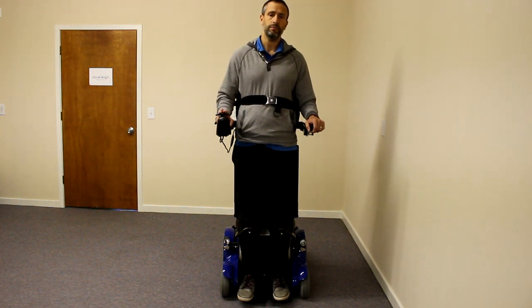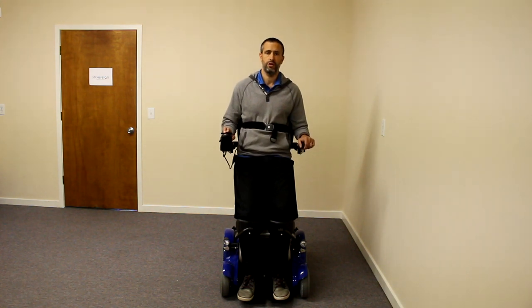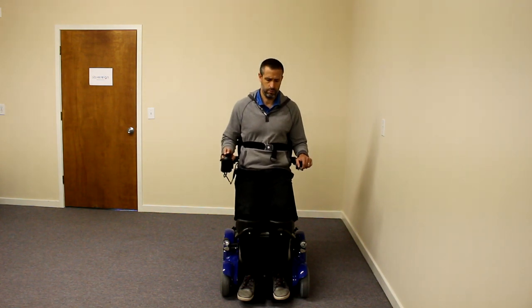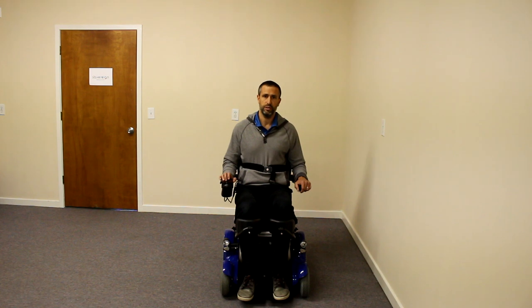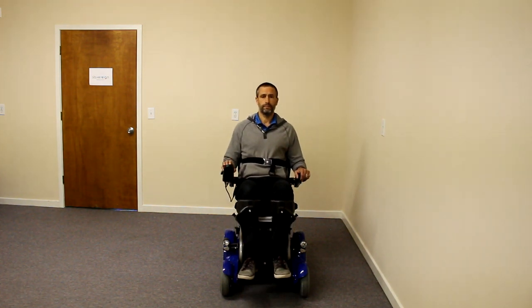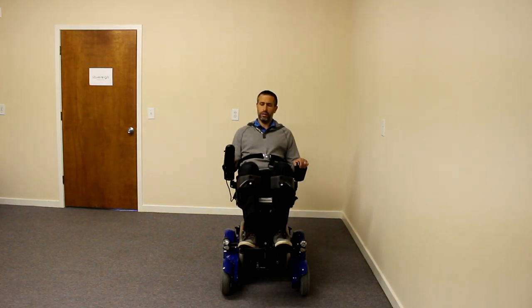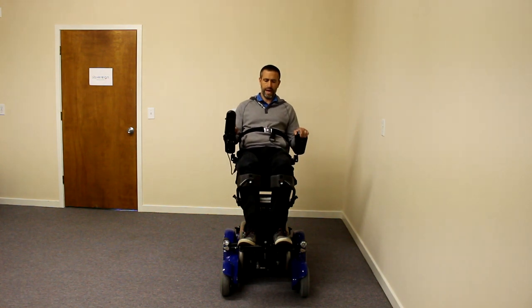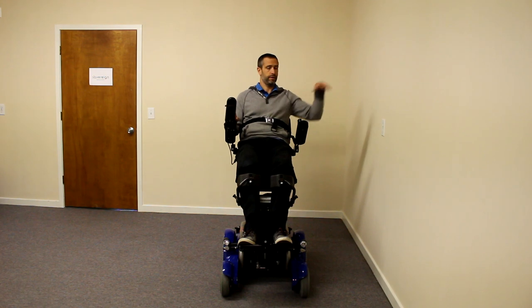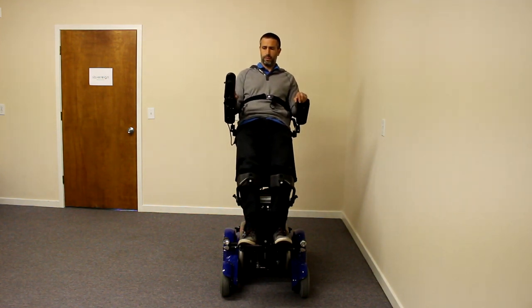I went right from a seated position. It goes down rather quickly. I can drive from any one of these positions — you can drive fully standing, and you can drive well, and even pretty fast. I can also switch into the tilt space. This chair has 30 degrees of tilt. Once you're all the way back at 30 degrees, from there you can start to stand — and it kind of looks like a seat elevator at this point, as the seat pan flattens out. It's almost like a built-in seat elevator, where you could reach something.